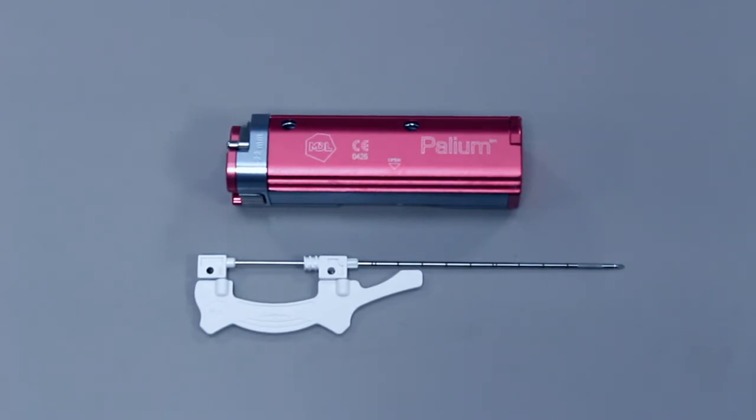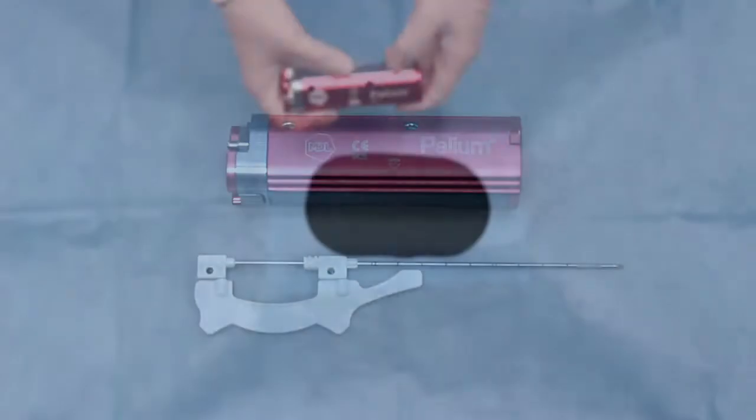The Palium gun is designed and manufactured to perform multiple true-cut biopsies in different hospital settings. Its intuitive design and shooting strength make it a reliable tool for a number of different operators.